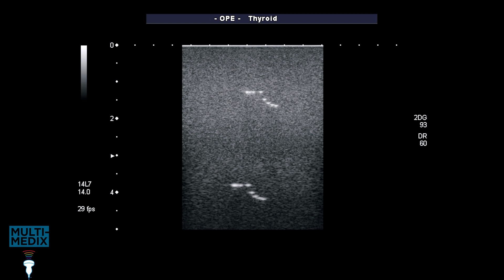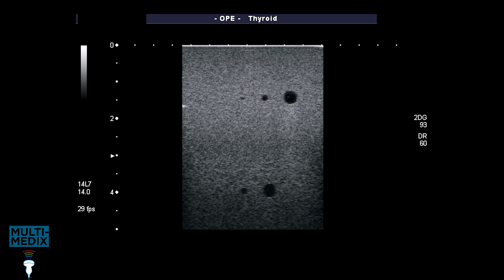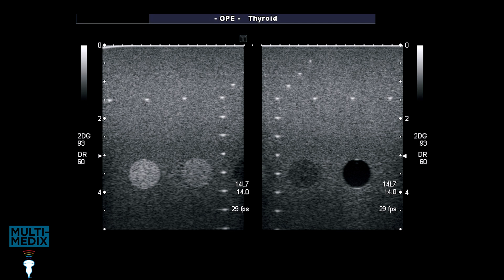It's worth storing images of all the target sets in your phantom for visual comparison in case you suspect a fault. Phantoms come with a variety of targets — always some nylon filaments and often some cystic and grey scale targets. To summarise, these are the tests that give you the results and images you'll need for comparison for future testing and if you suspect a fault when scanning. You'll have a preset for user testing; this allows you to spot dropout and other non-uniformities and make an assessment of sensitivity and noise. If you have a phantom you've also got some clinically relevant sensitivity measurements and some images that you can use for comparison if you suspect a fault.